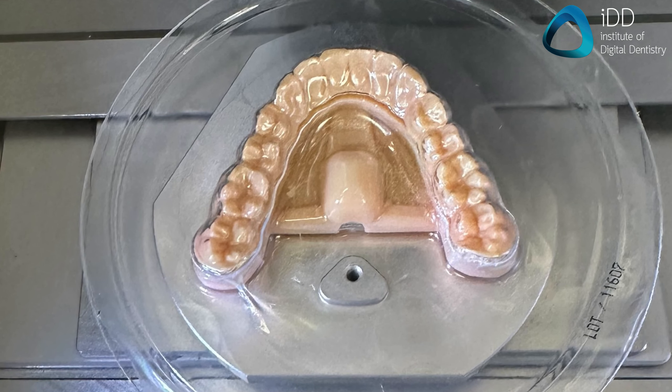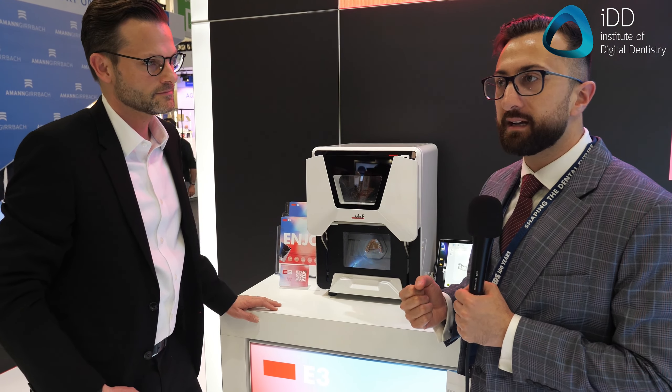While Nicholas is doing that, what's really exciting about this for me as a dentist is that the aligner and orthodontic market is really blowing up. We don't really have a great solution because, at the moment, if you want to manufacture aligners in-house, there's printing — which is kind of getting there, kind of not — and there's also thermoforming aligners in-house. The issue with thermoforming is if you've got an average aligner case of about 16 aligners, that's 32 aligners top and bottom. 32 thermoformed aligners that you have to trim by hand for an average single case is a lot of labor.